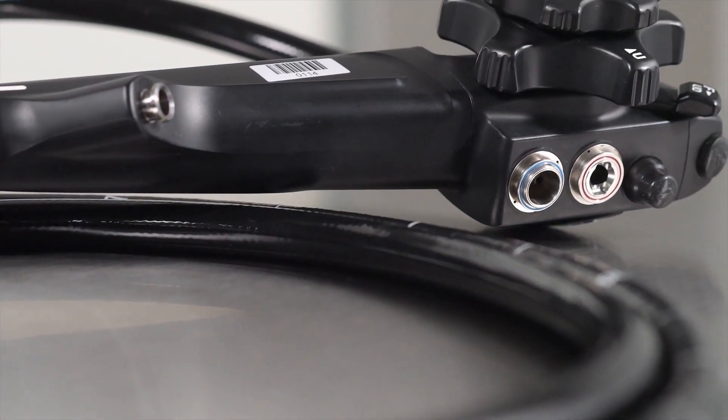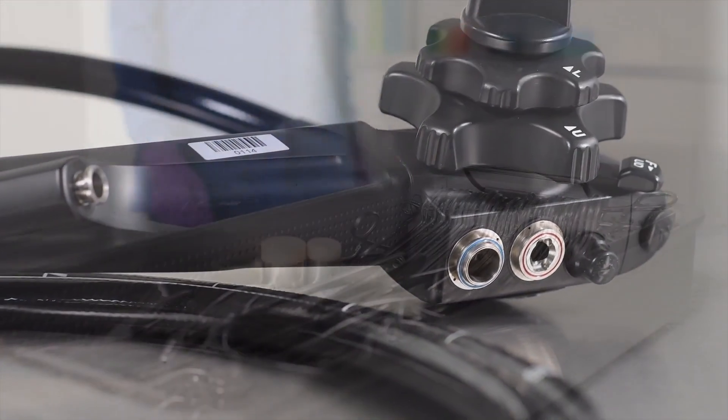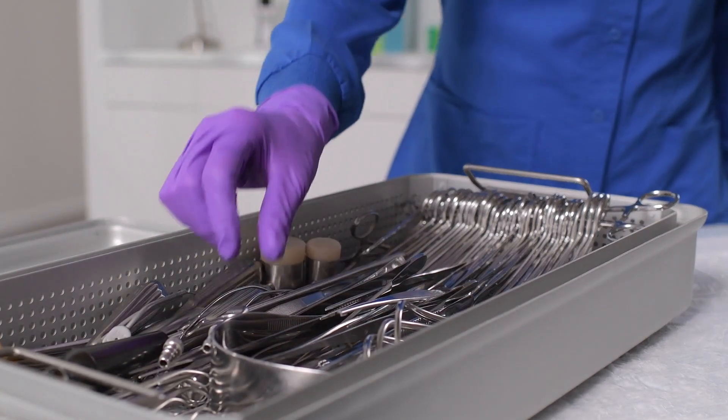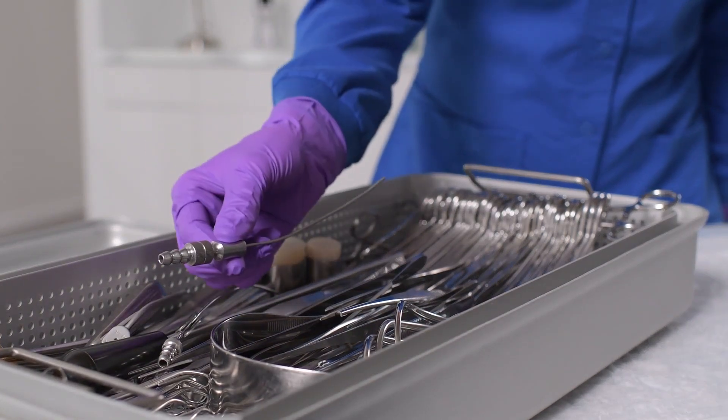Effective cleaning is critical. Surfaces and instruments cannot be effectively disinfected or sterilized if they are not properly cleaned first.